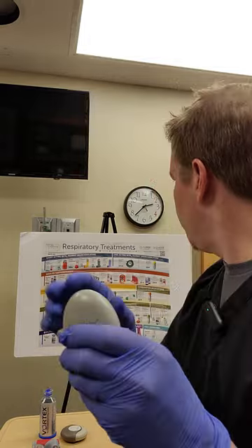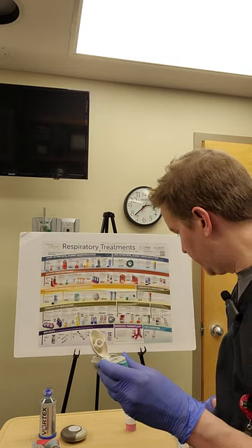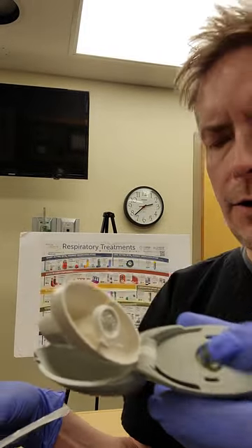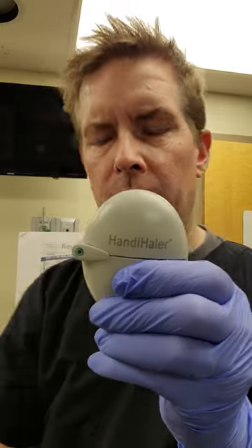This is a specialty device you don't really see that often — it's kind of old. It's Spiriva. The way this works is there's an actual capsule with dry powdered medication in it. This capsule goes into this container right here. Once it's in, you drop the mouthpiece, which punches a hole in the capsule, and the patient takes a breath from there.